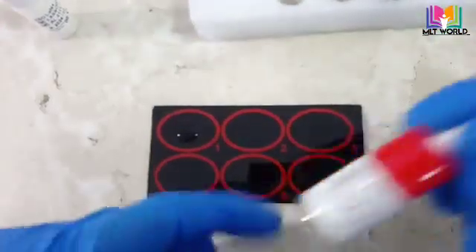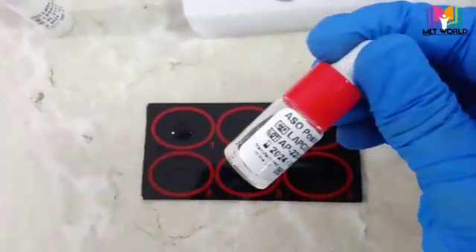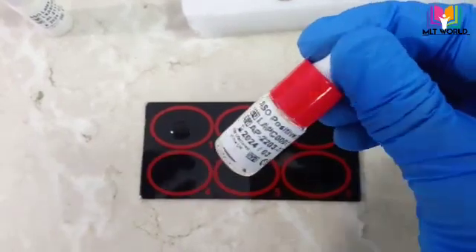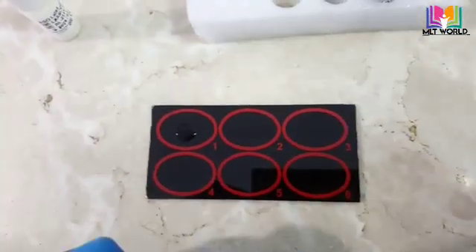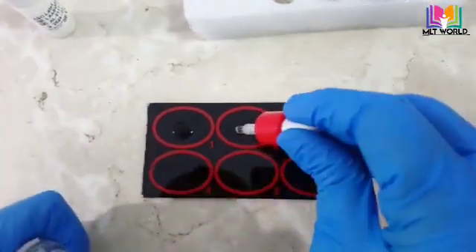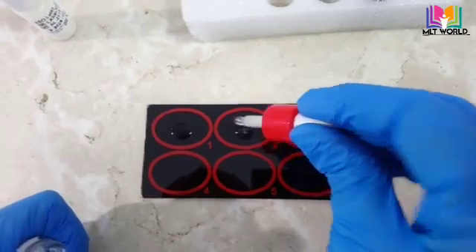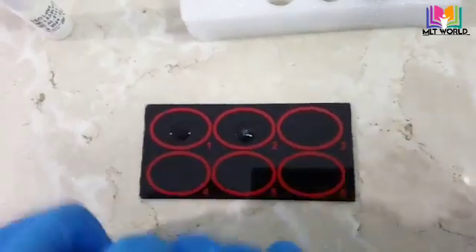First of all, we have to check the control. If you are opening the reagent, it is better to run control. Otherwise, if you have more samples, run it on a daily basis or at the start of the day.